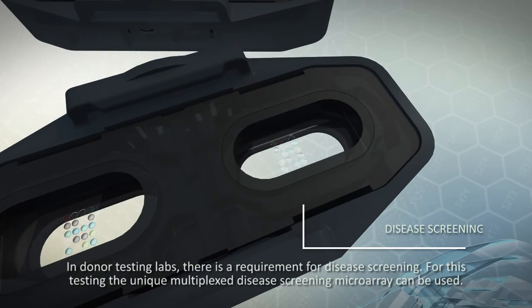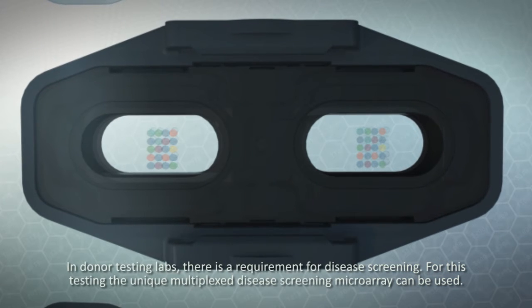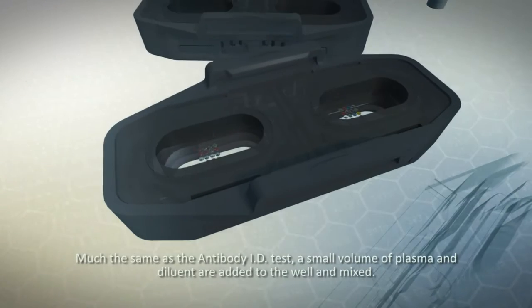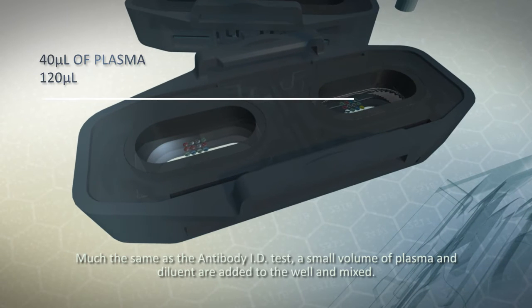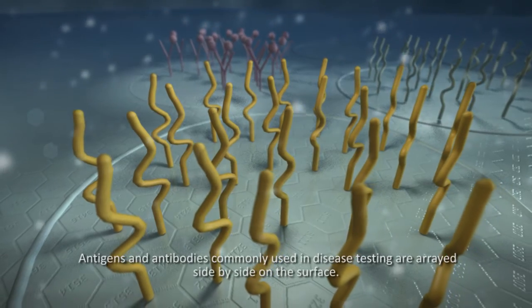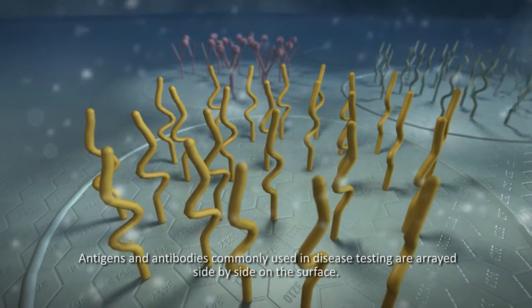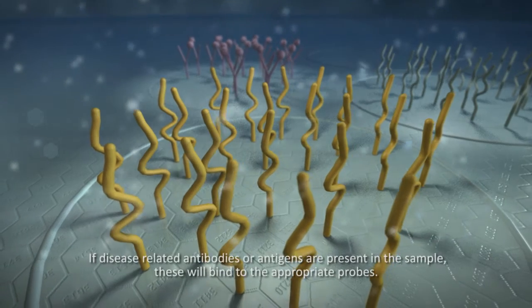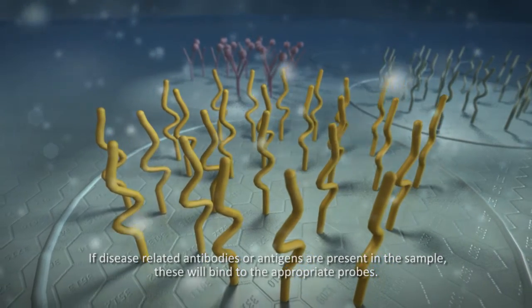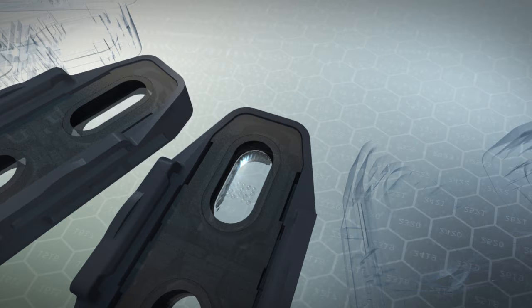In donor testing labs, there's a requirement for disease screening. For this testing, the unique multiplexed disease screening microarray can be used. Much the same as the antibody ID test, a small volume of plasma and diluent are added to the well and mixed. Antigens and antibodies commonly used in disease testing are arrayed side by side on the surface. If disease-related antibodies or antigens are present in the sample, these will bind to the appropriate probes.